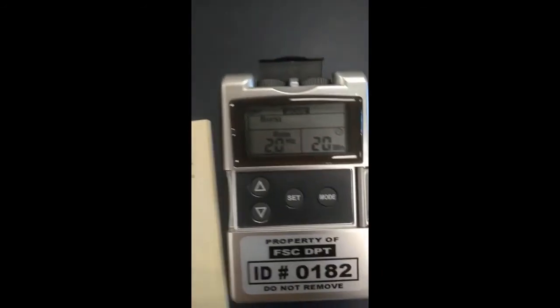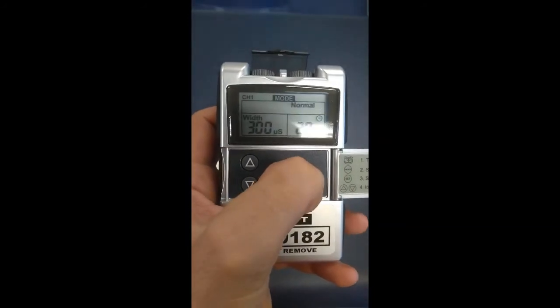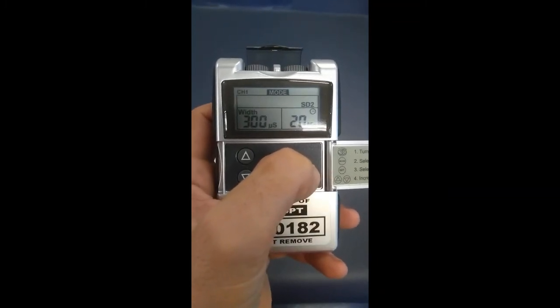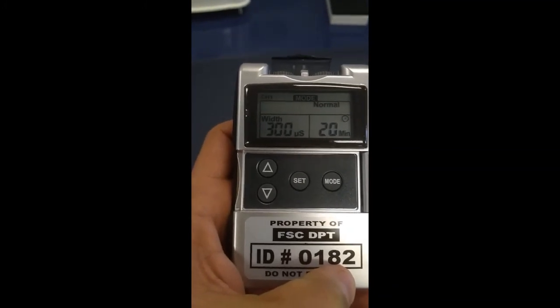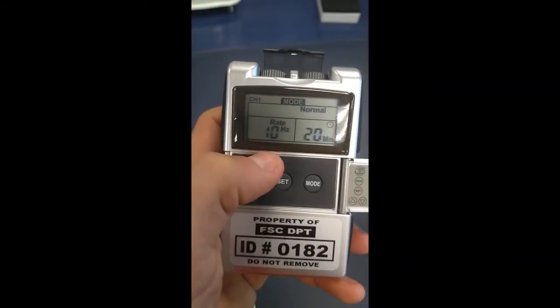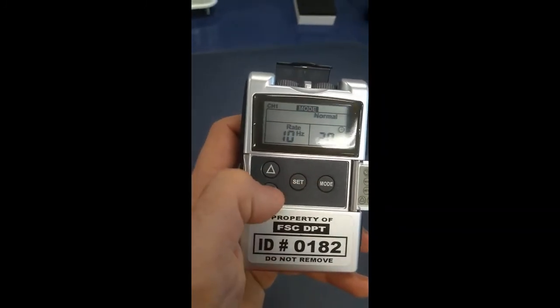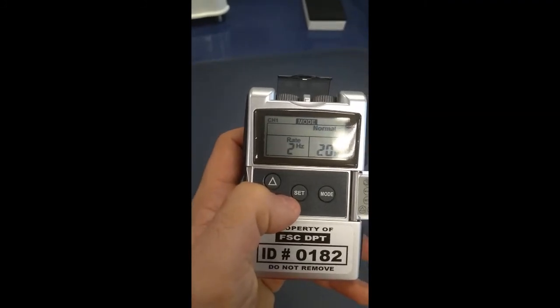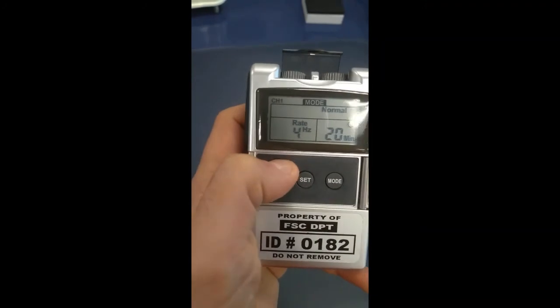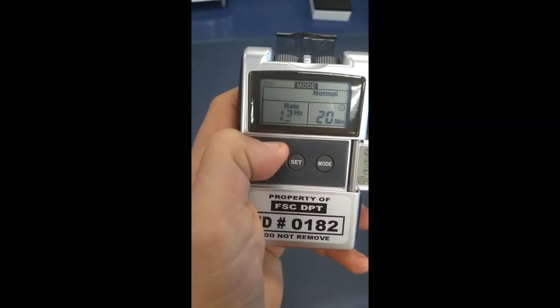Once the machine is on, you can select different modes by pressing the mode button to cycle through normal, modulation, SD1, SD2, or burst. Normal mode is your traditional TENS mode — symmetrical biphasic with a rectangular format. You can set the rate: pressing set toggles between width and rate. A low rate of two to ten gets you motor TENS, more for strengthening and endogenous opioids. For high rate TENS, hold the up button to increase the rate up to around 100.